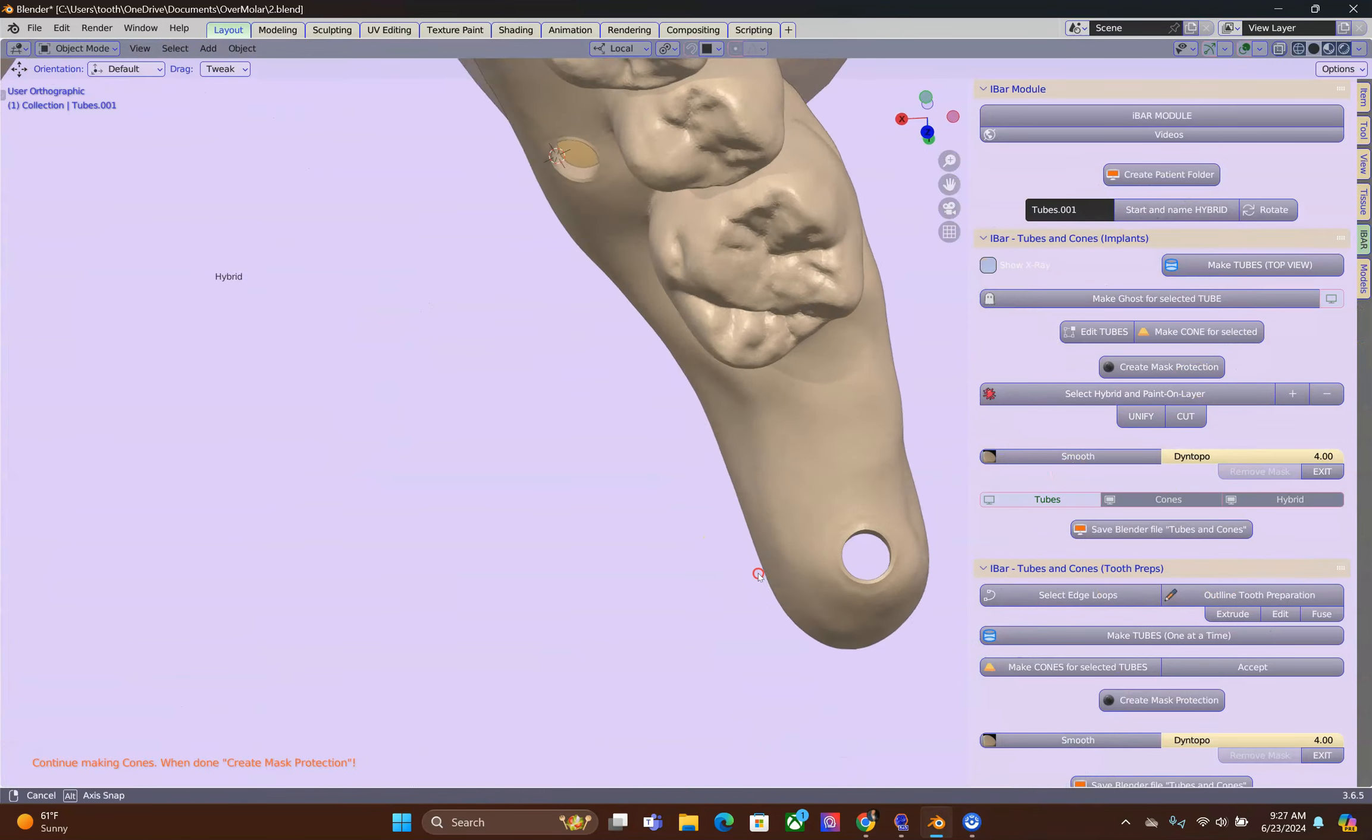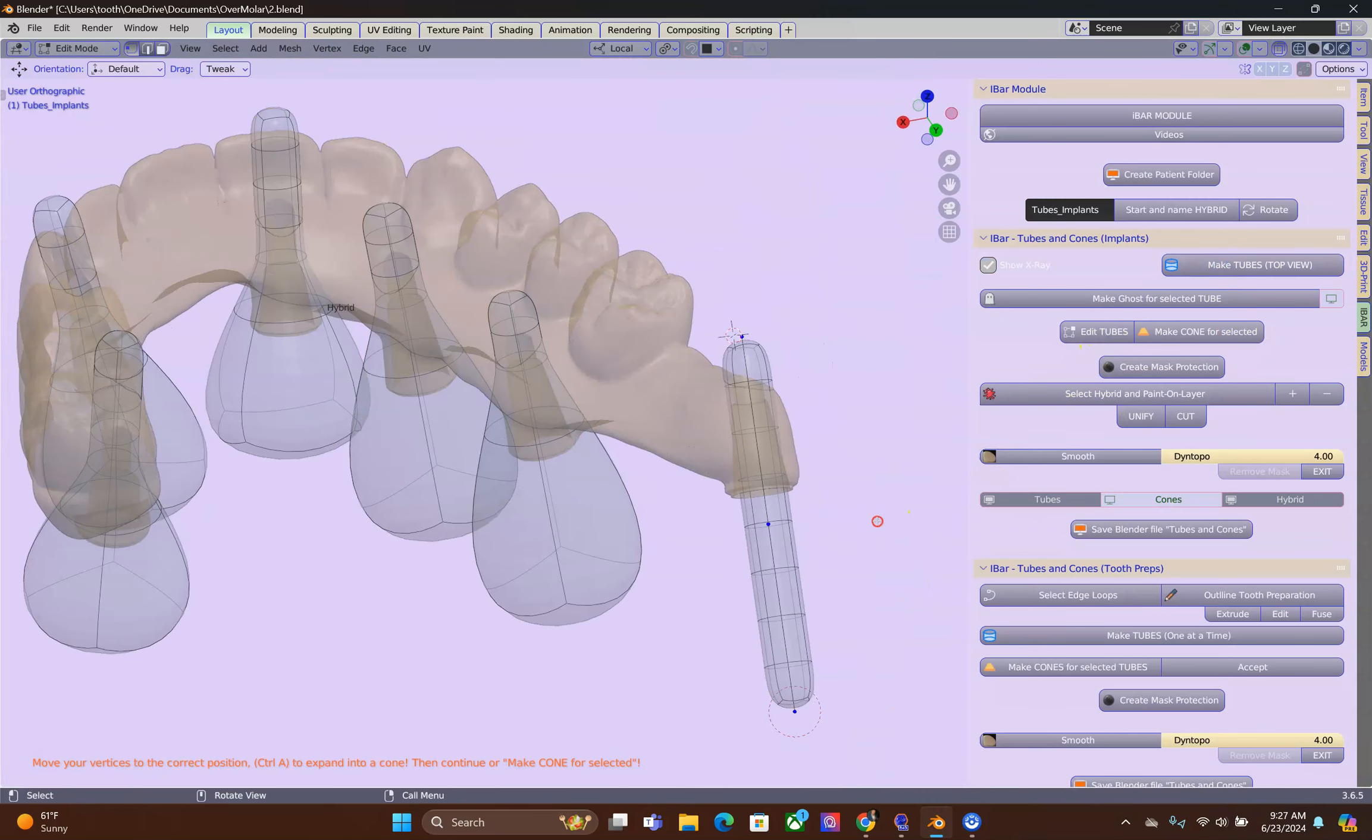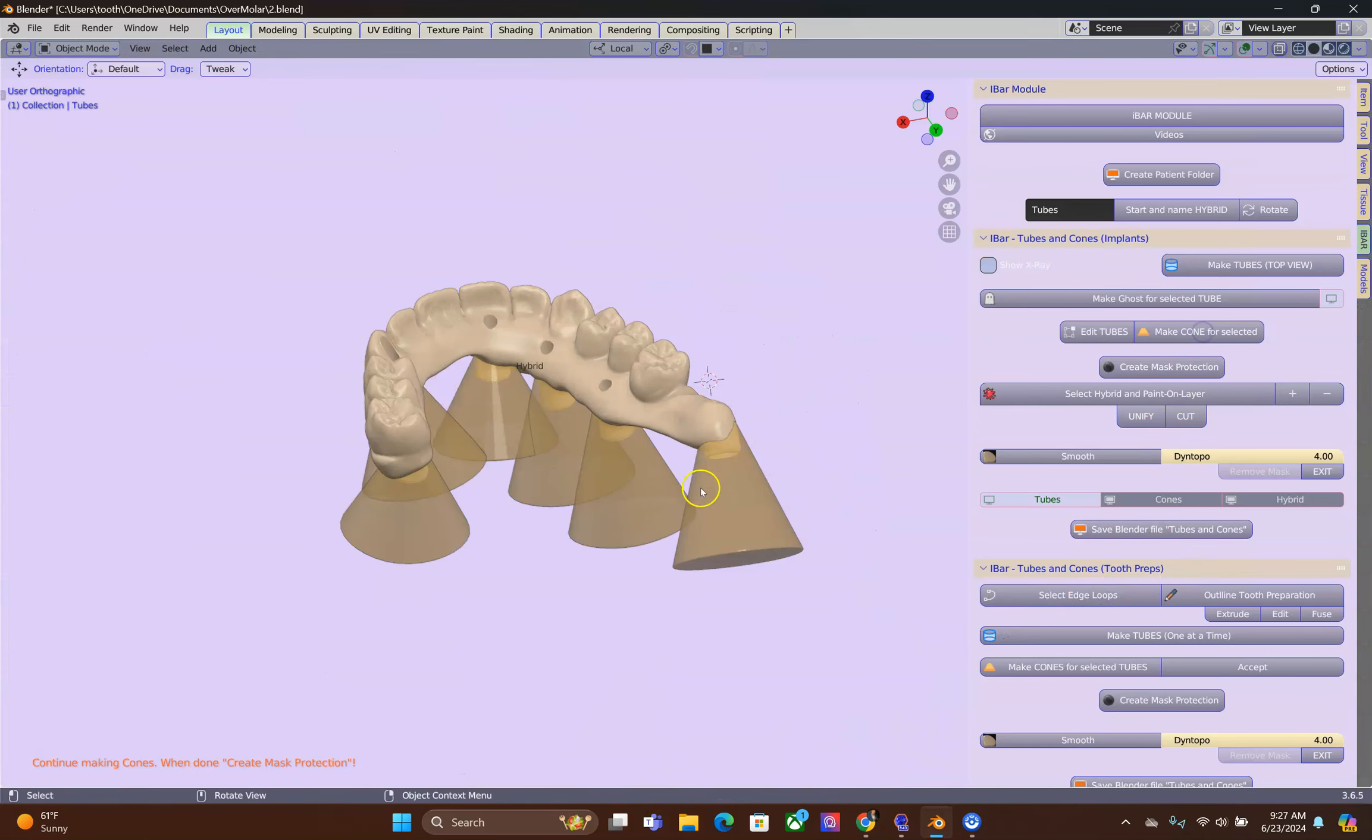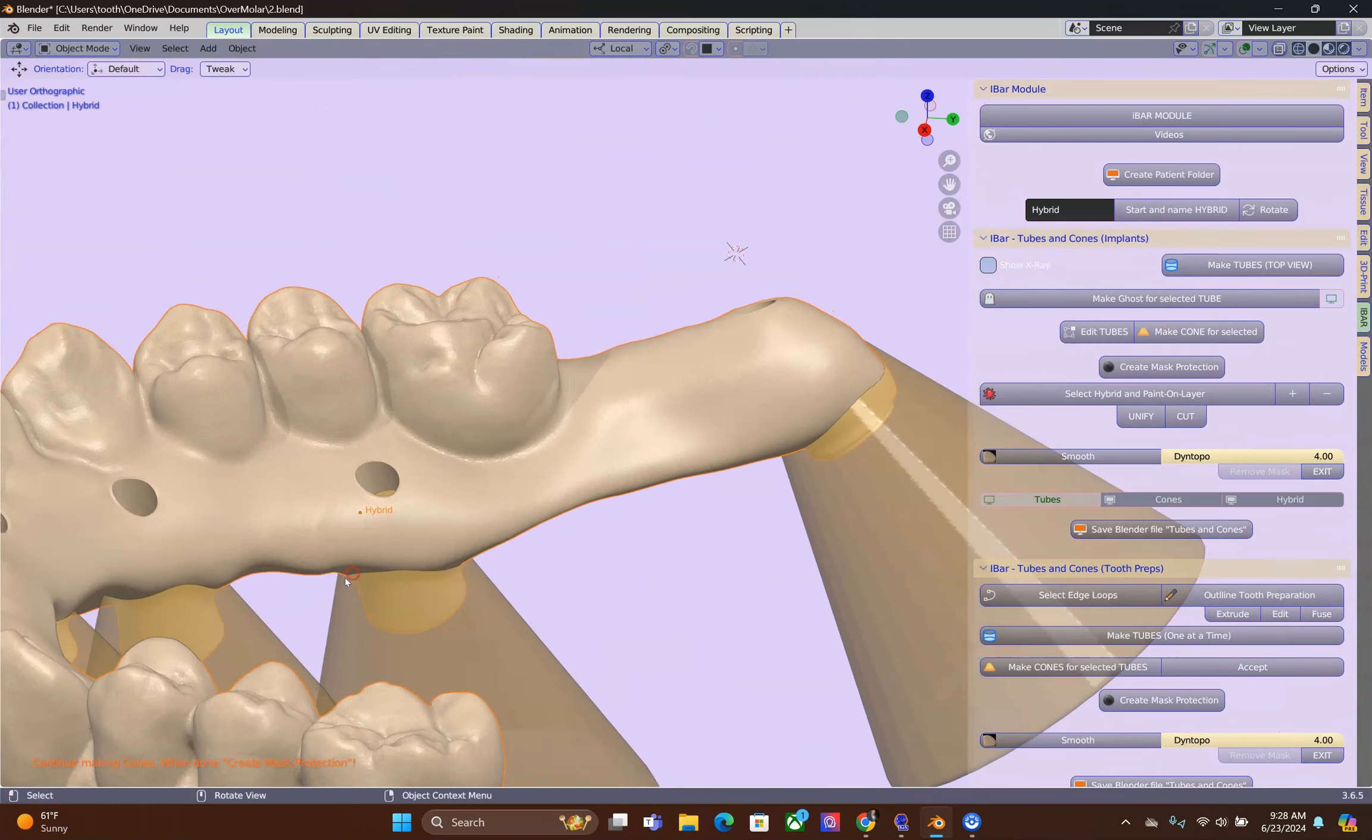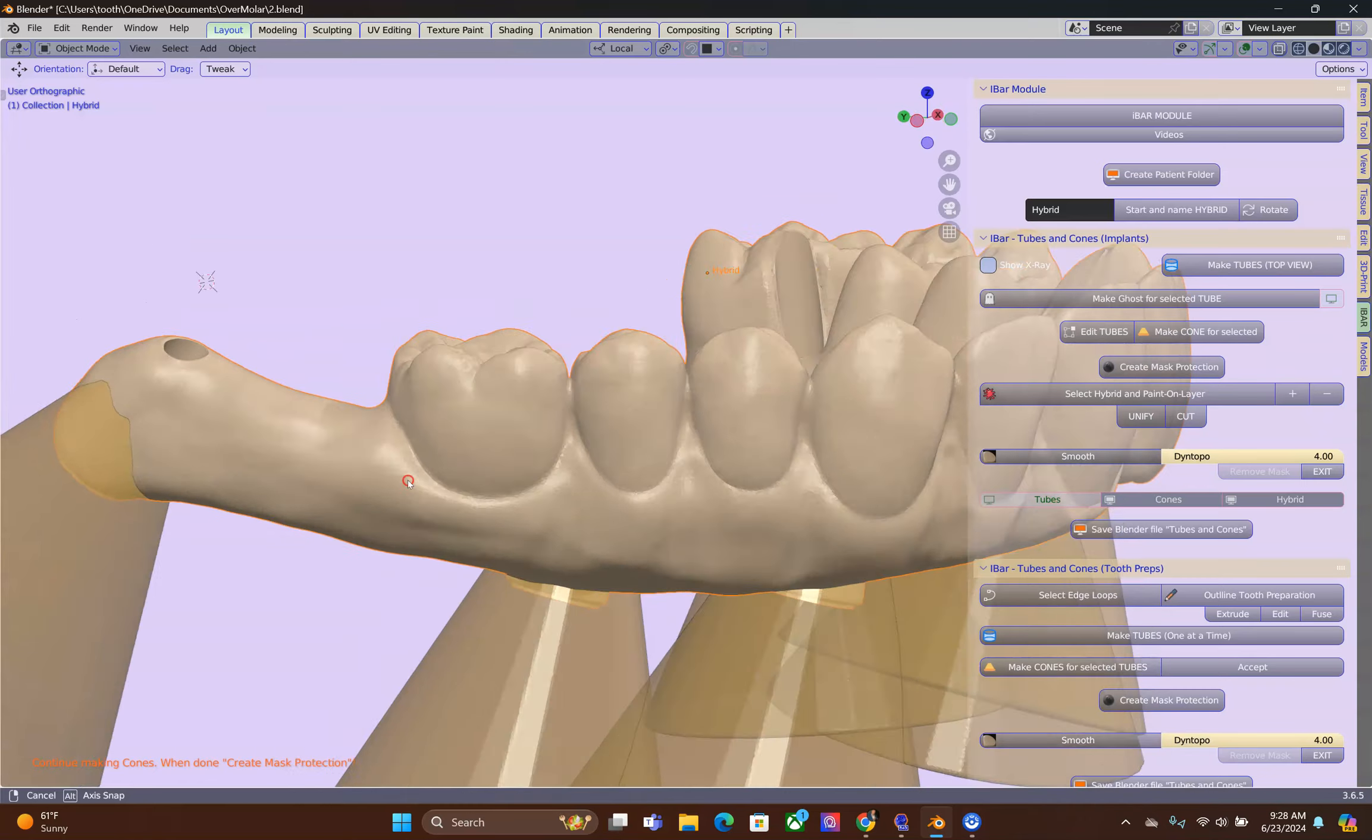Alright, I did forget one. I'm going to make this one as well even though this particular one will be totally excluded. So not really necessary to make one but let's do it anyway. Then click on the Create Mask.